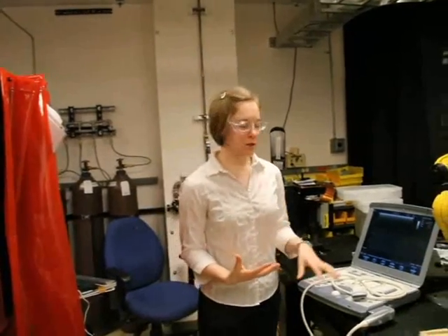Hi, my name is Michelle Visgechny. I'm in Manufacturing Technologies and I'm going to show you what we're doing to produce Ultrasound Transducers.